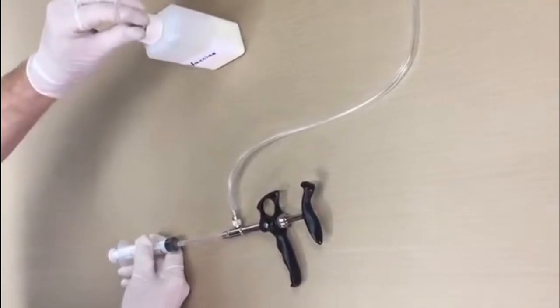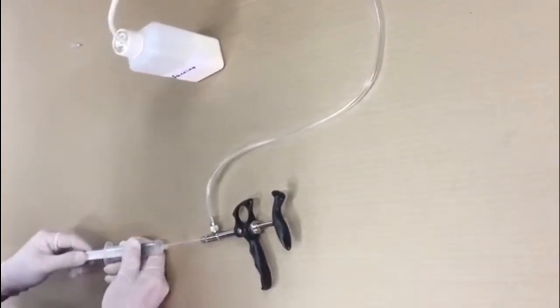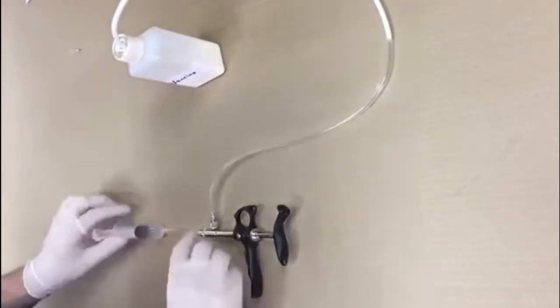Check to see that the tube and needle is inserted correctly in the bottle. Start drawing the air out of the tube with the disposable syringe. You will see that the vaccine is coming through the tube.